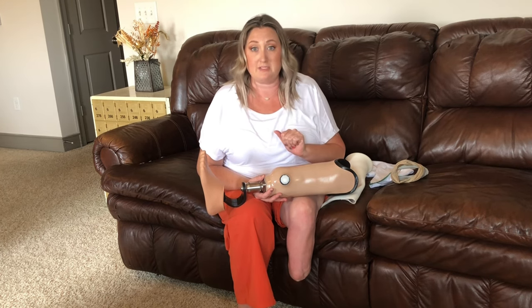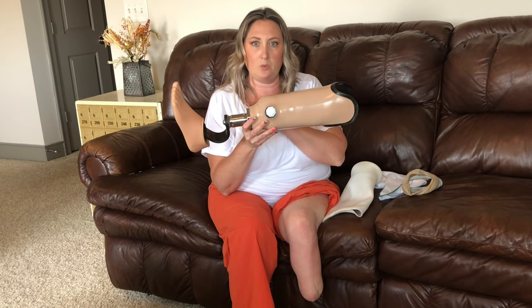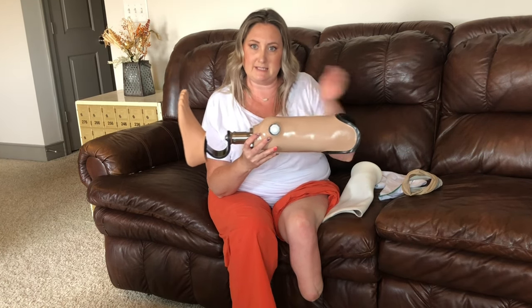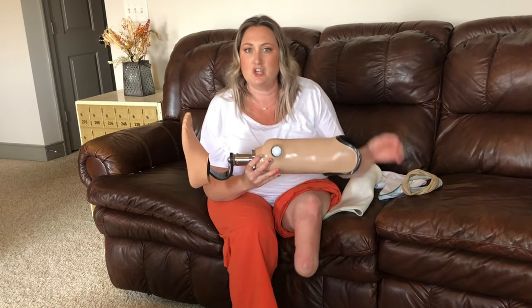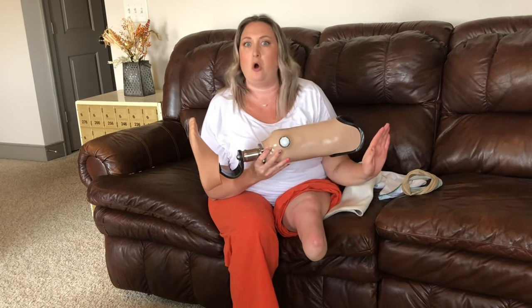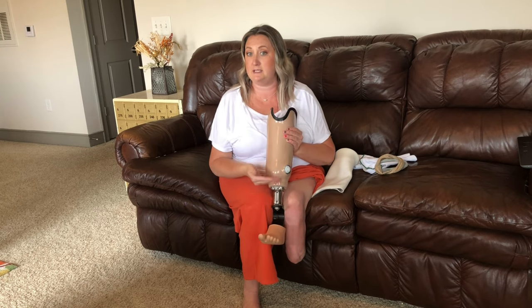It's almost impossible to walk and it is not possible for me to push through that for more than about four to five steps before I have to call for some help. So this little bump-out area in my socket was created by my prosthetist heating it up and pushing it out so that my socket does not touch the end of my limb at all. This little relief area and my limb being so incredibly sensitive is actually a limitation for me for other sockets.